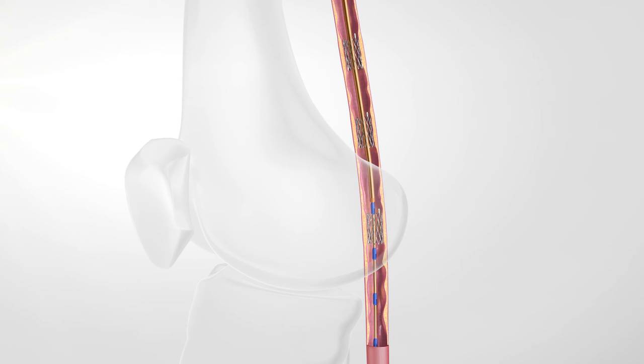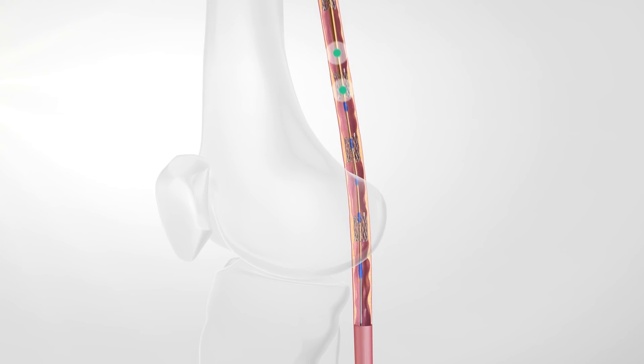All implanted stents should be post-dilated for better stent vessel conformity. In case less than 6 lesions are treated, unused stents may remain in the delivery system.